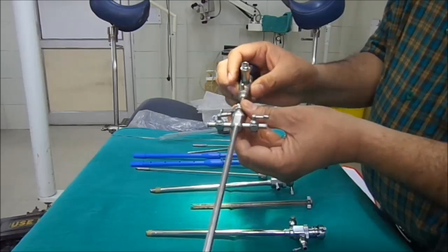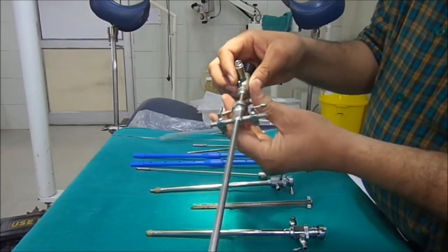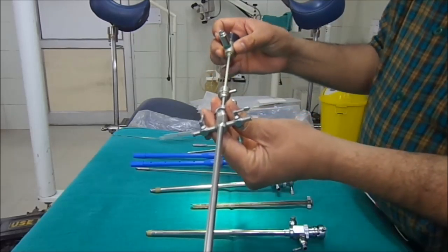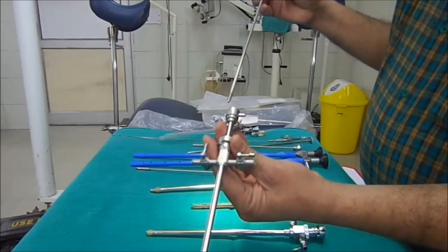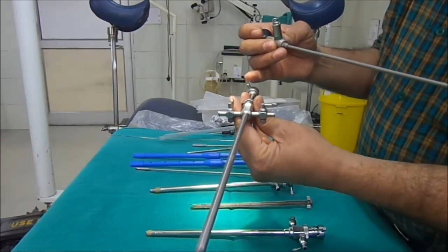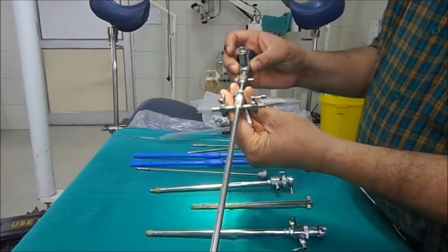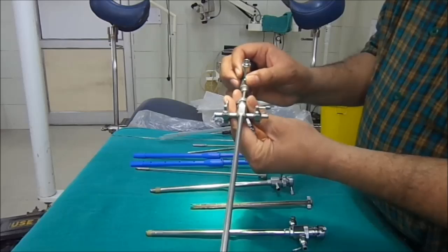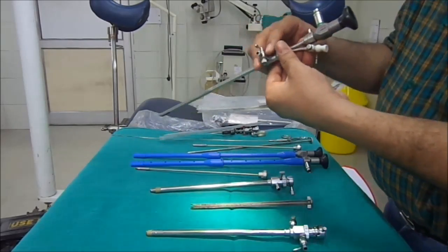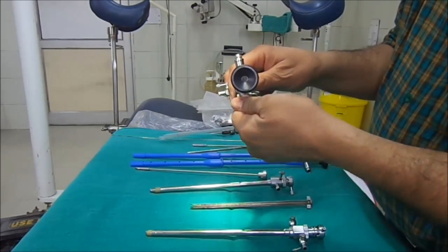This zero degree telescope is introduced into the telescope bridge and is locked. For unlocking, move anticlockwise — this is the locking position, this is the unlock position. It is now locked. So the basic unit of the cystoscope is now assembled.